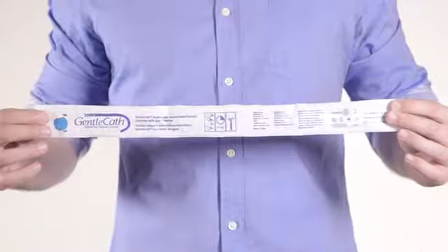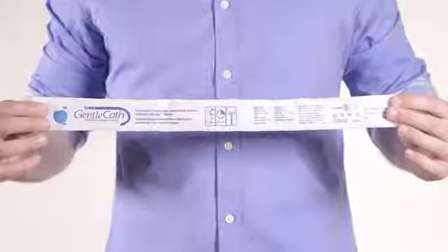The Gentle Cath Hydrophilic Catheter is a coated catheter indicated for intermittent drainage of the bladder. It is designed to minimize the risk of infection while providing comfortable catheterization.